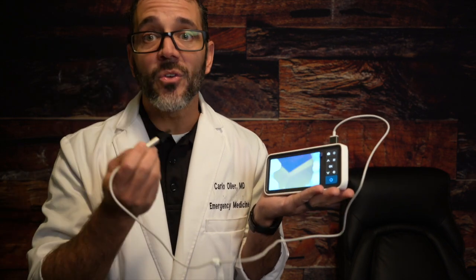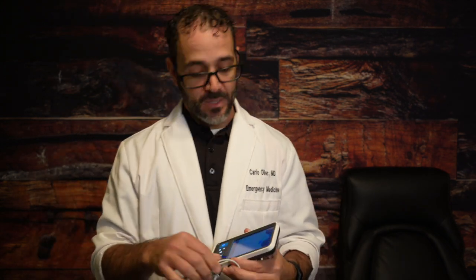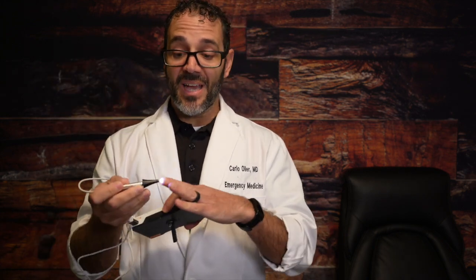You can do a throat, you can do your nose, I mean, it's truly a remarkable tool for 75 bucks in Amazon, so check out the link on the description below. I give this thumbs up, definitely something I'm going to use at the bedside. It's going to impress parents, impress patients, being able to show them what's going on with their kid's ear, or when they have a bead in their ear, or I want to remove a foreign body and I have a lighted end with a little scooper that I can put in and remove the foreign body at the same time I'm looking at what I'm doing. So I think it's absolutely great, and I hope you give this a try.